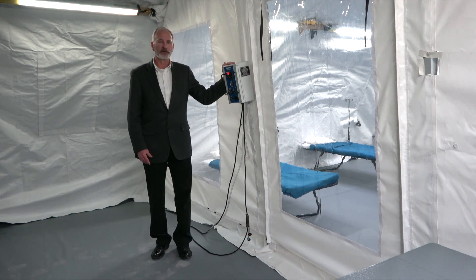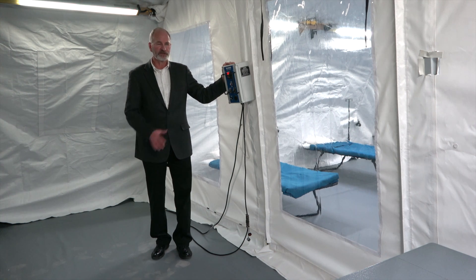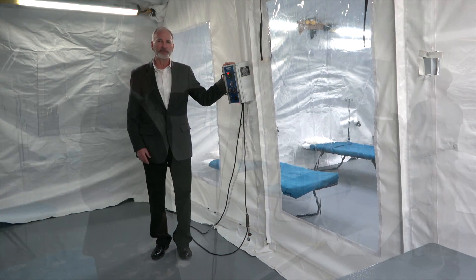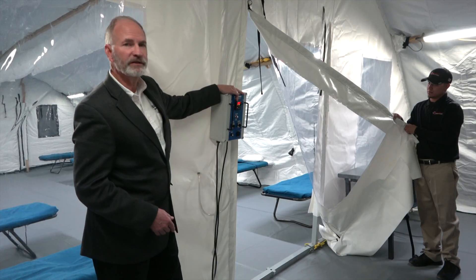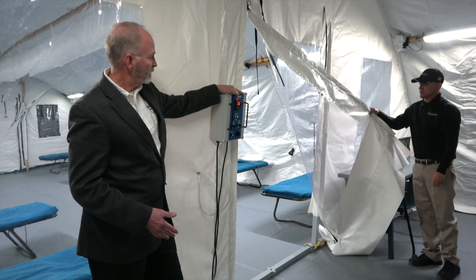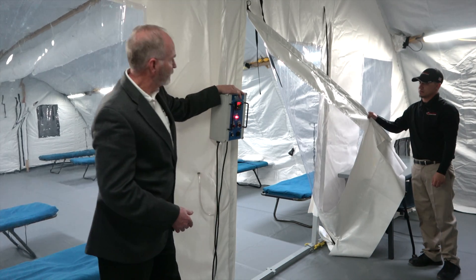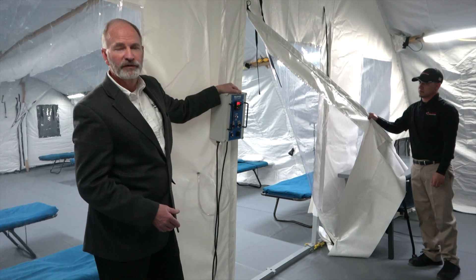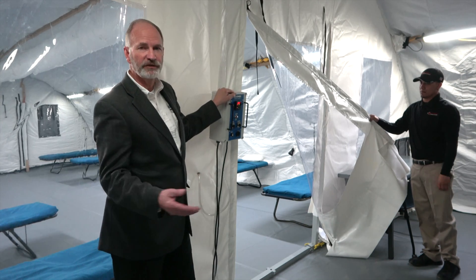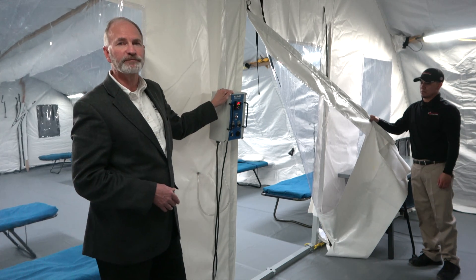This is the alarm monitor that regulates the pressure inside the patient care area, and once it drops below zero, it'll continue to alarm until you actually regain negative pressure.